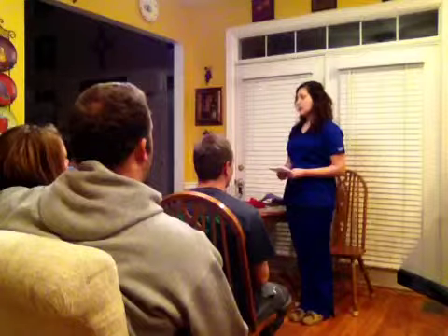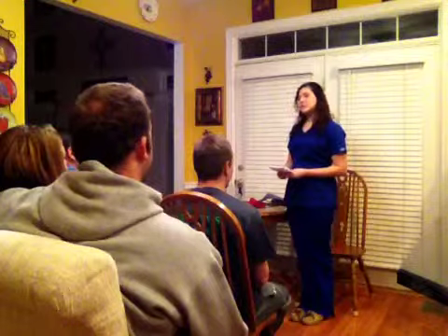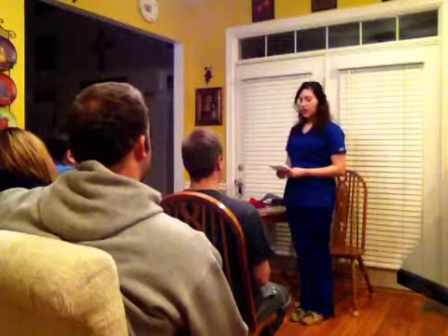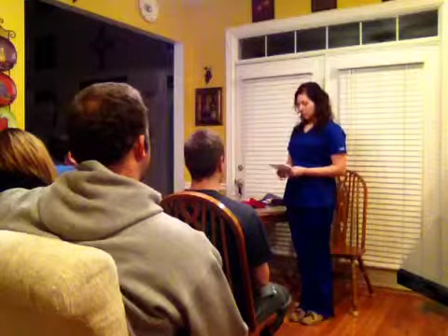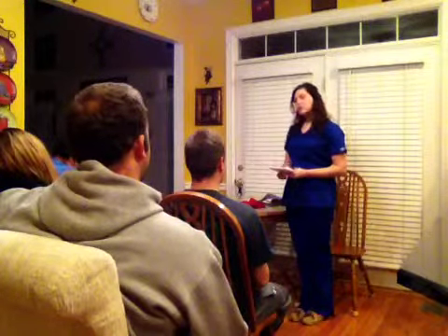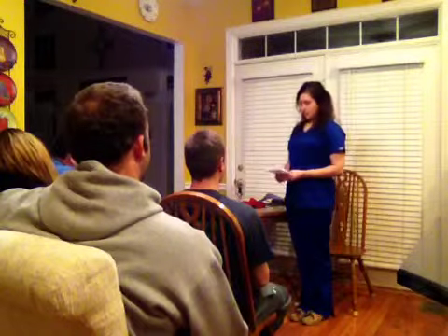High blood pressure, also known as hypertension, can cause many health issues, including fatalities. High blood pressure contributes significantly to death rates through strokes, kidney failure, and heart failure. As a registered nurse, knowing how to manually check my patient's blood pressure is an extremely crucial skill that I must excel in. Automated machines are a great resource and very convenient. However, they can often cause false or inaccurate readings, leading to misdiagnosis.